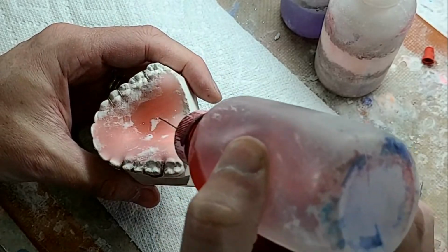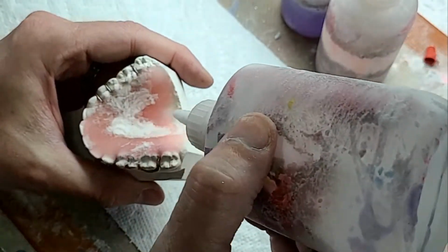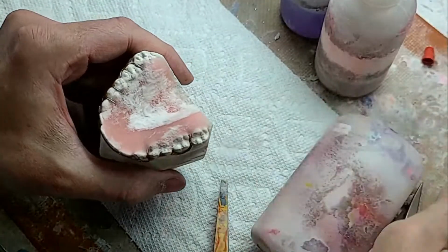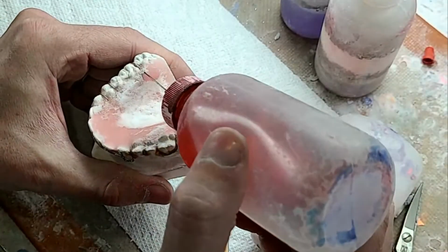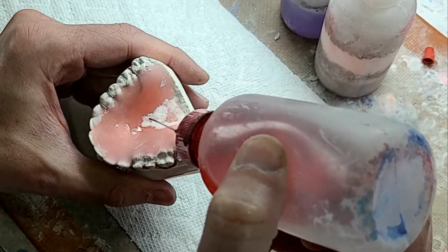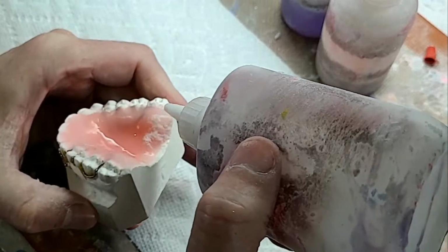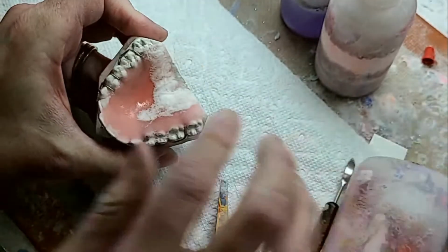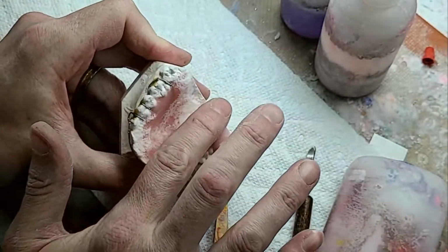Somebody asked, do you refrigerate your clear monomer? And I haven't been doing it lately, but I noticed, you know what, I kind of need to. Some of my splints that I've been doing have been coming out with a lot of little air bubbles, and that means it's setting up too fast on me. So that's the pressure pot. If you get it in the pressure pot early enough, before the polymerization really starts kicking in, you can prevent a lot of the little bubbles from forming, and it's crystal clear.